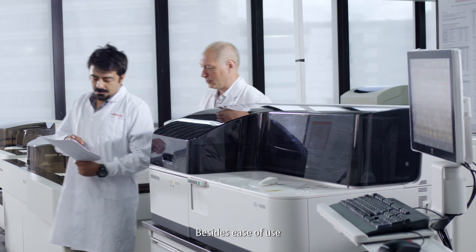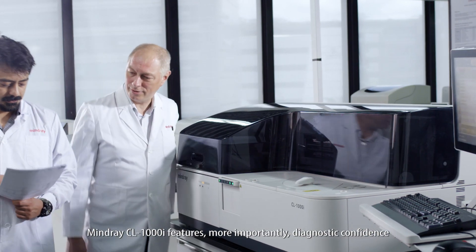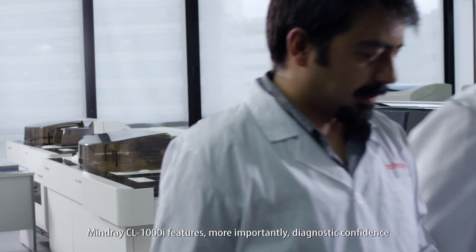Besides ease of use, MindRay CL1000i features, more importantly, diagnostic confidence.